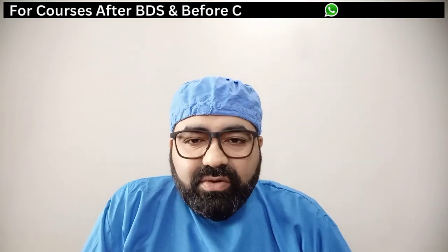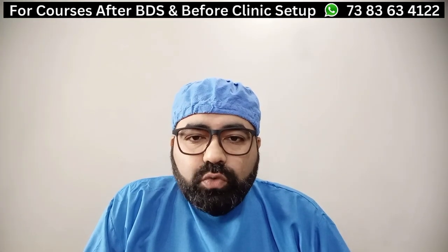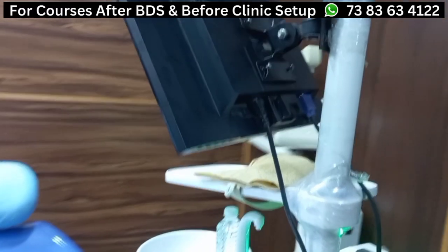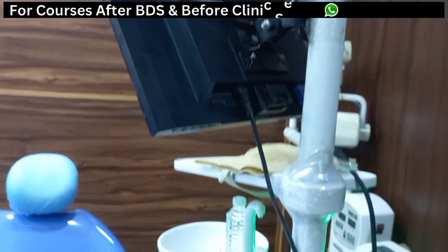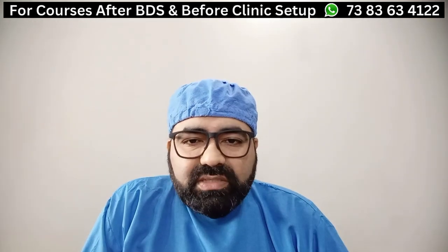Hello doctors, welcome. We are back once again with one of the additional videos related to intraoral camera. Today's point of discussion is how to get a two screen setup done. The initial part of this section was already discussed in the previous video — the components and how to perform wiring related to two screen setup. Now the last part is how to connect a TV screen or an LED screen to a dental chair. Today we are going to look at all the steps included under this, and it is a very simple and easy process that anyone with simple tools can do.